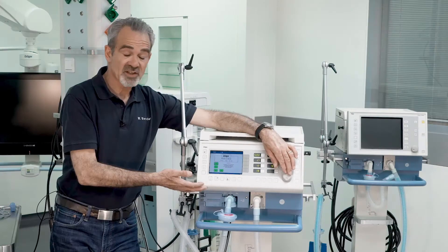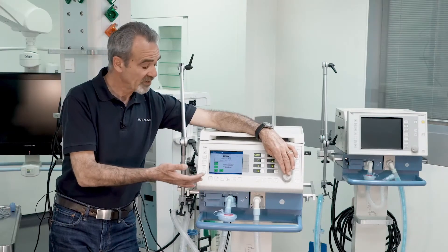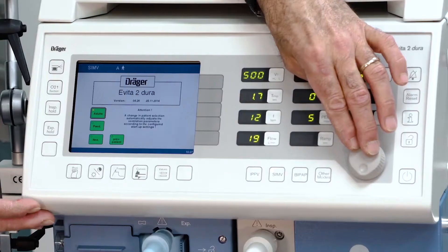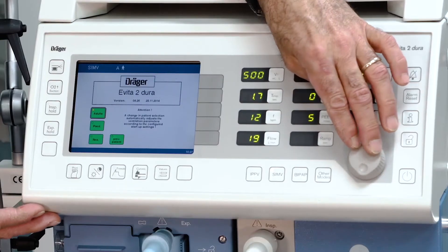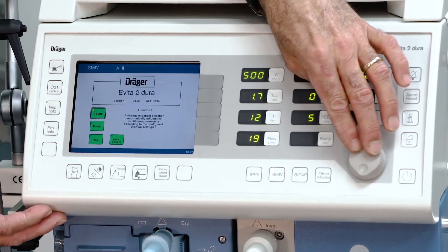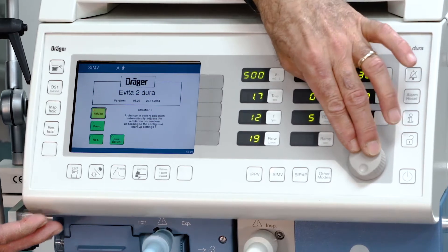Let's get started with the new adult patient. Select the adult patient and confirm with the rotary knob.